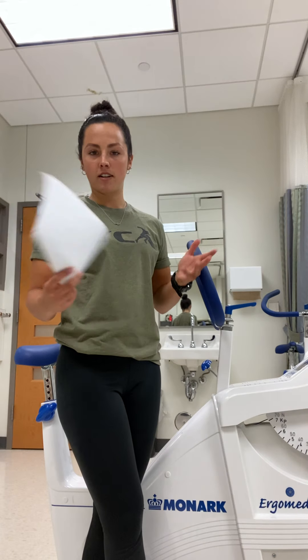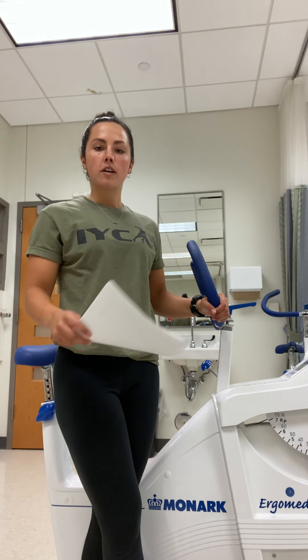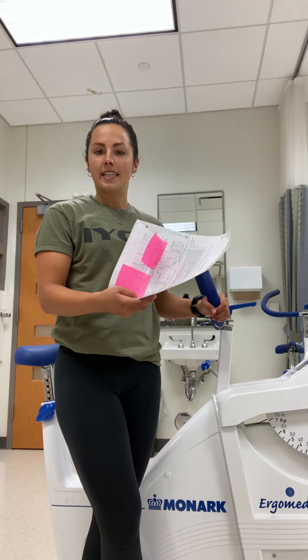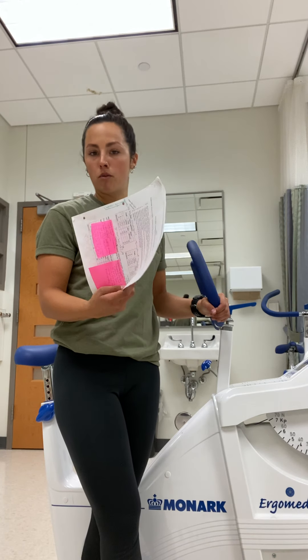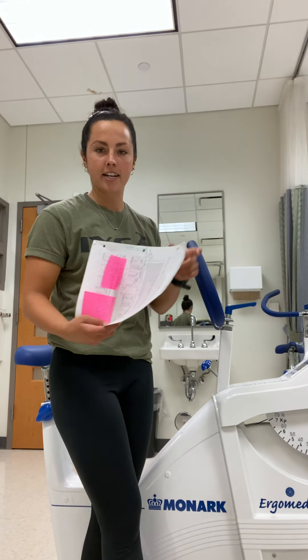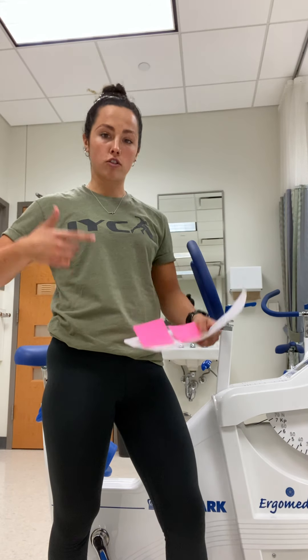This is an equation — we have to know what watts breaks down to. Something to write down is: watts equals kg times cadence. If you think of a mountain bike or a regular bike with gears, to make yourself go faster you can either pedal more — that's your cadence, always in RPMs (revolutions per minute) — or you can adjust the gear so there's more resistance. You can pedal slower but with more resistance and still be at the same intensity. Those are the two things we can adjust for watts.